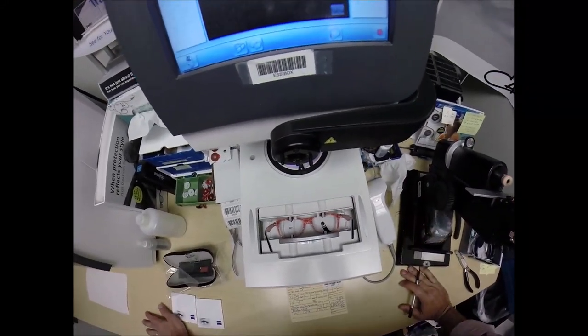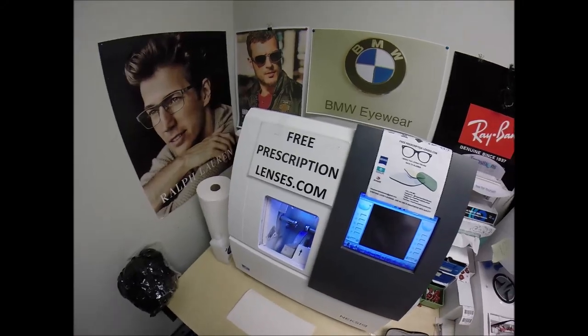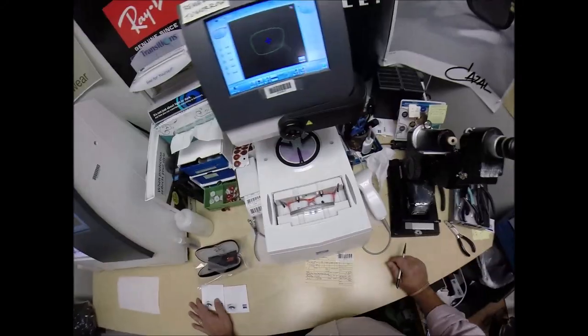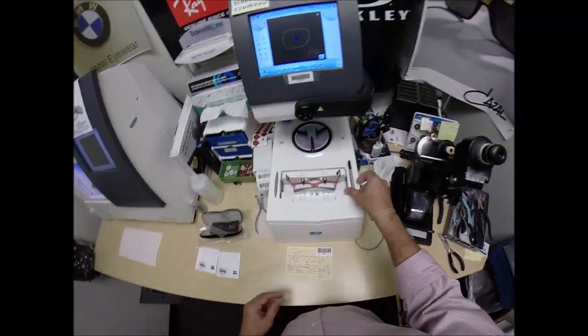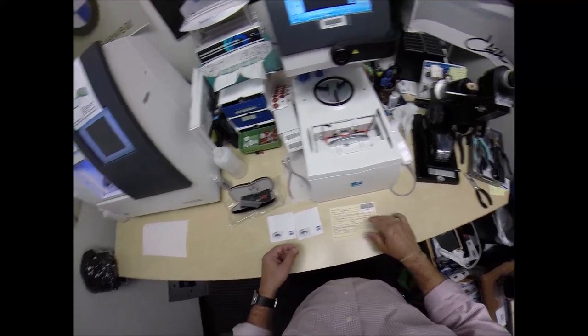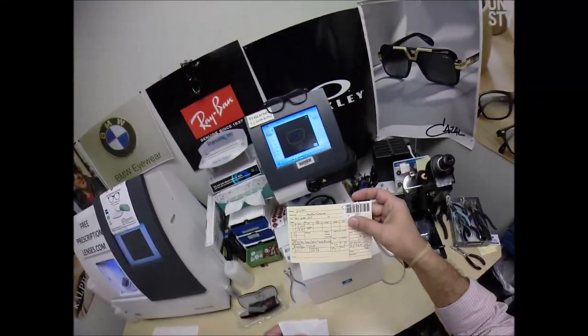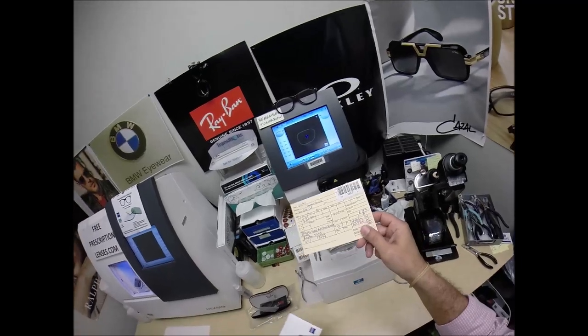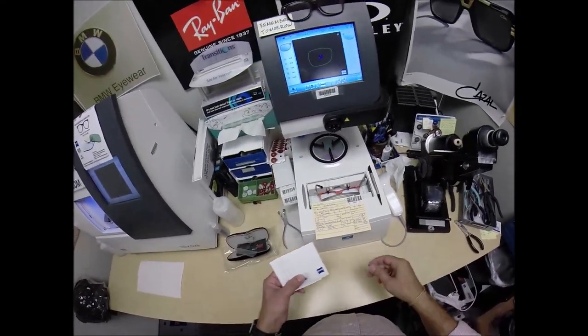So the stylus is going to pop up and trace the inside bevel of the right side of the frame, before doing the same thing on the left, here at freeprescriptionlenses.com. You buy any frame that I offer and you'll receive one free pair of clear single vision prescription lenses or non-prescription fashion lenses. My receipt has my federal ID tax number, so if you have vision insurance or unused health savings account or flex dollars, you will get reimbursed for your purchase with the itemized receipt that I can provide to you.